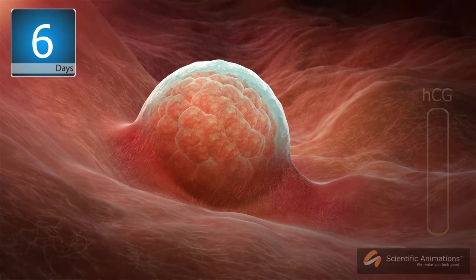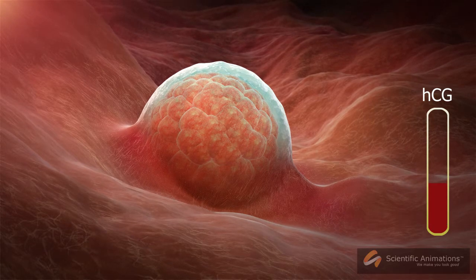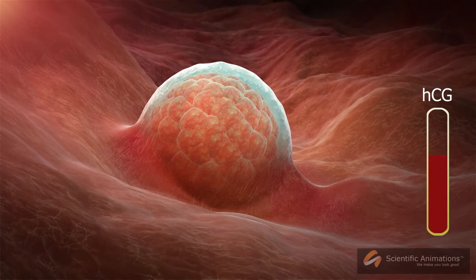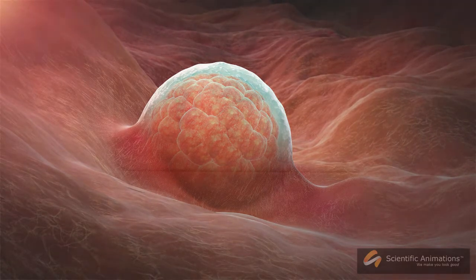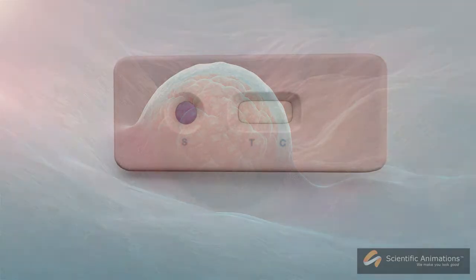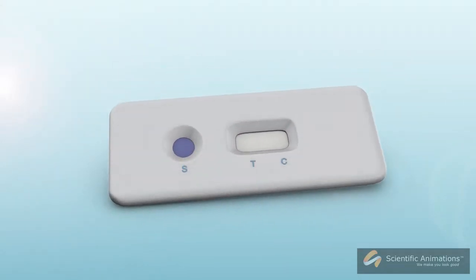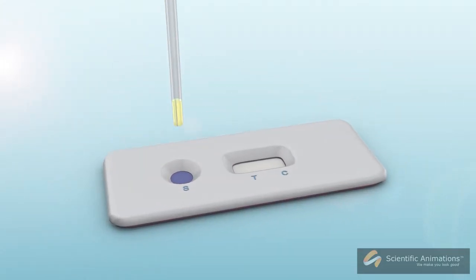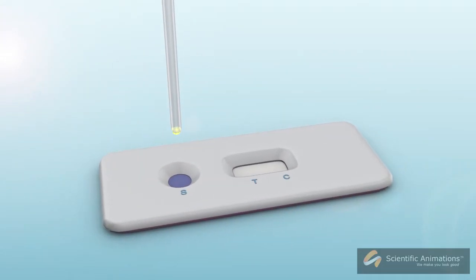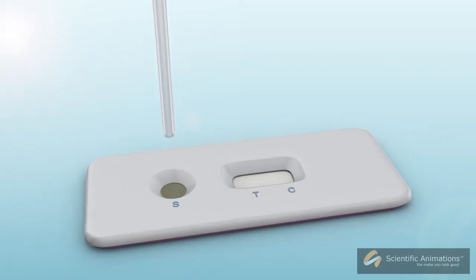After implantation, the body begins to produce the hormone HCG. HCG levels rise fast and can be measured either through a blood test or a urine test.